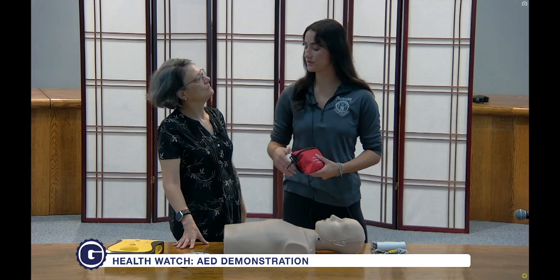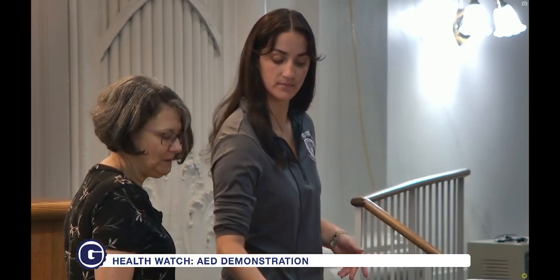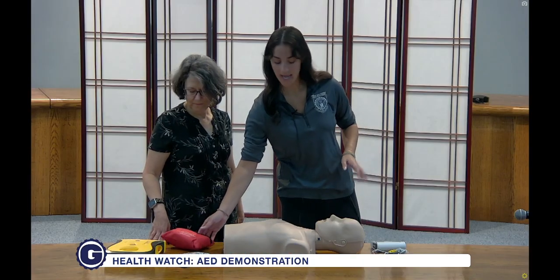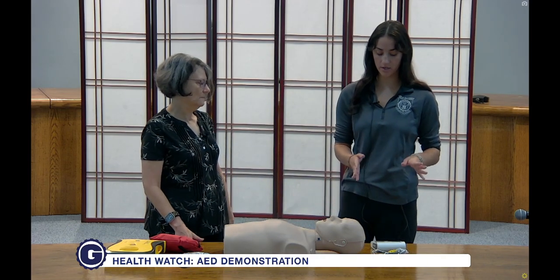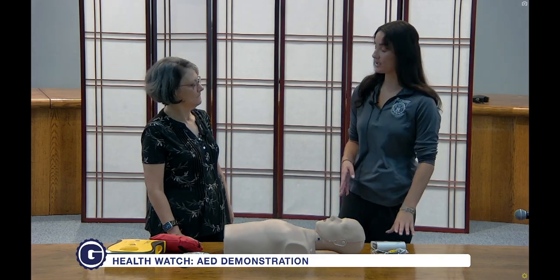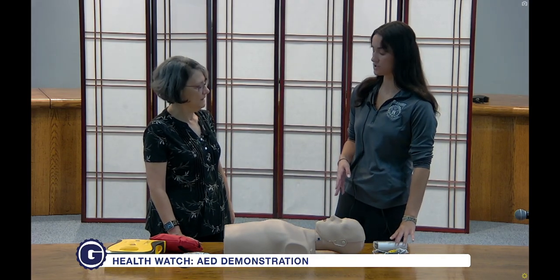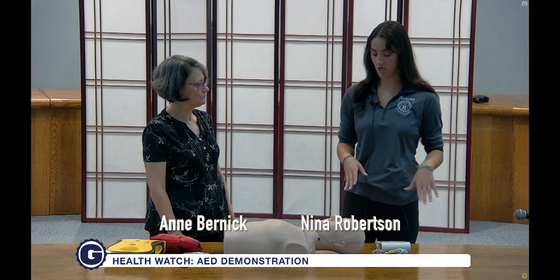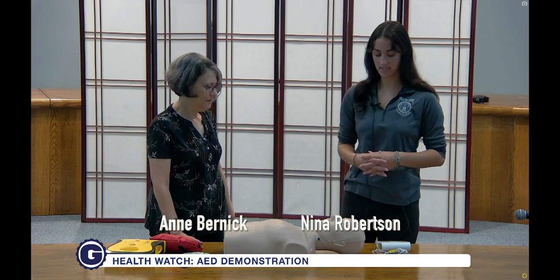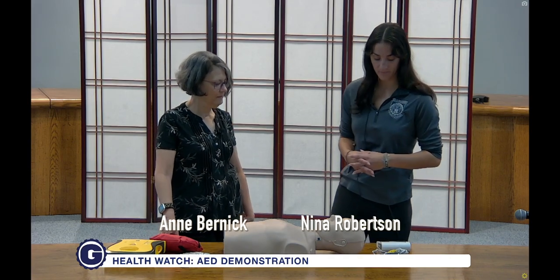And you're also going to have the child-sized pads for anyone under eight years old. But today we're just going to be focusing on using the trainer AED. This will not administer a shock — it's used for educational purposes only.